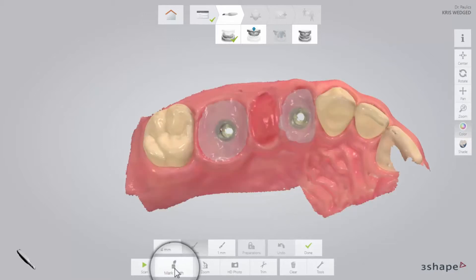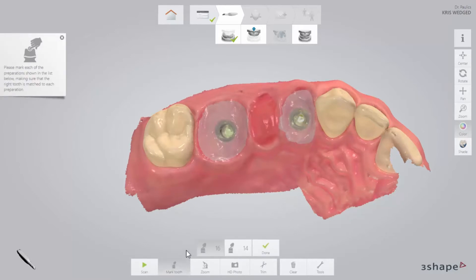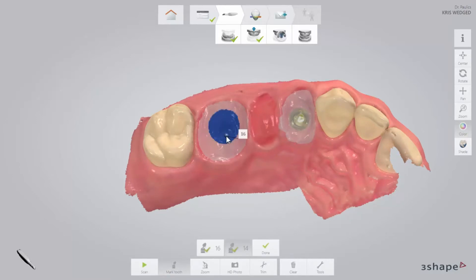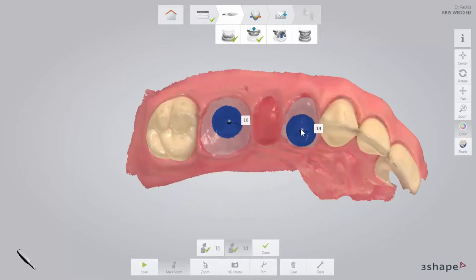Finally, mark the preparations. You will see a blue overlay around the preparation mark indicating the area that will be automatically cut out when going to the scan body page. If necessary, you may reposition the prep mark to obtain your desired cutout. You may adjust the automatic cutout radius under Settings, Scan, or you may turn it off completely if you prefer to trim manually.